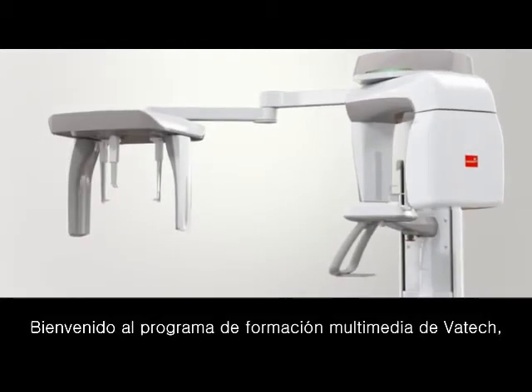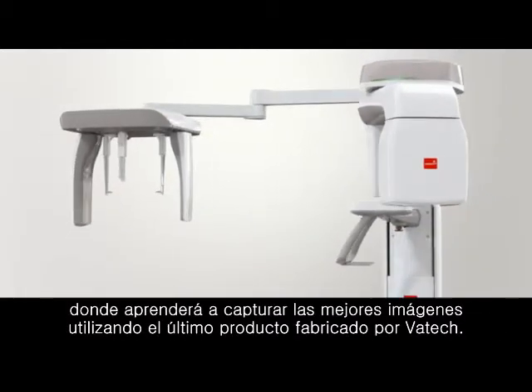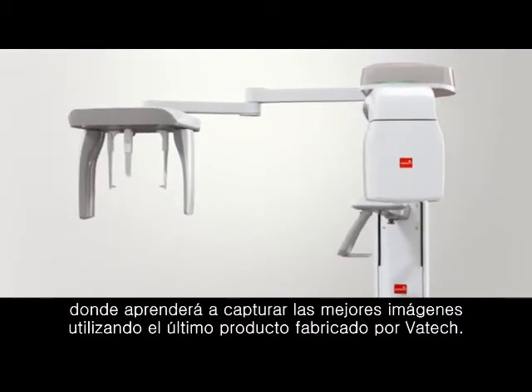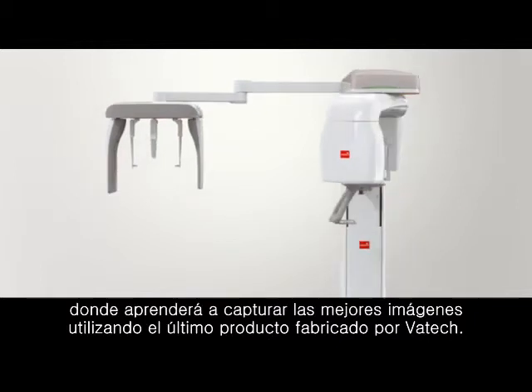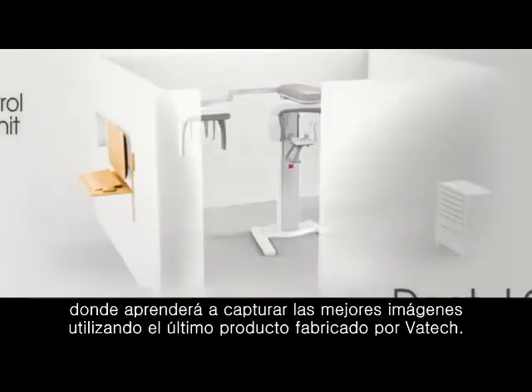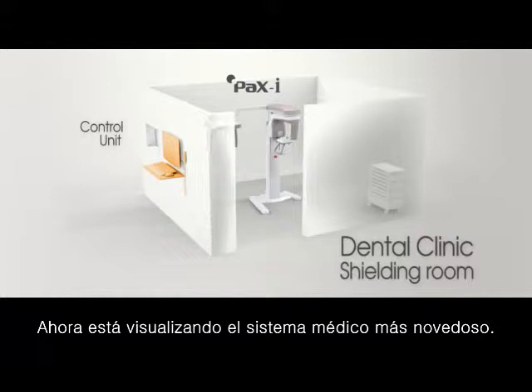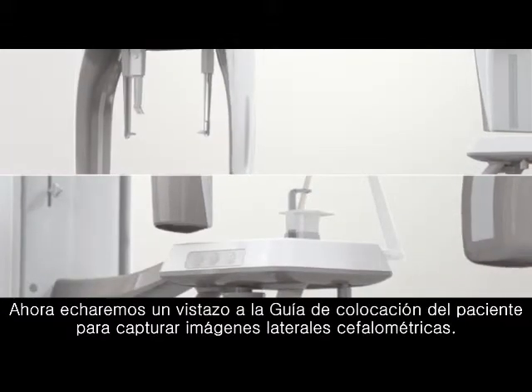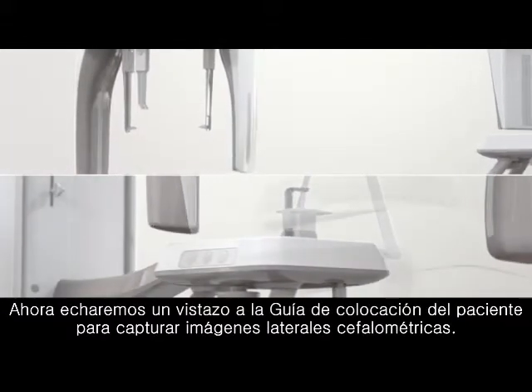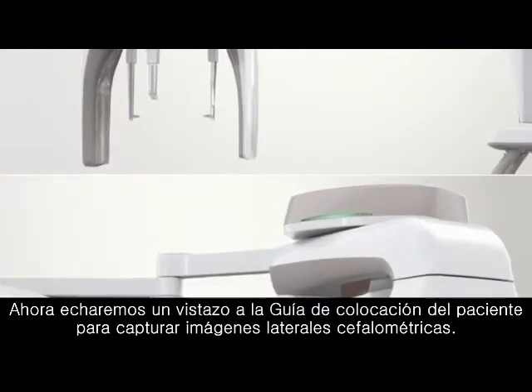Welcome to VATEC Video Training that shows you how to take the optimum images using the latest product manufactured by VATEC. You are watching the state-of-the-art medical system. Our latest system and control units will take you to acquire the most accurate images.